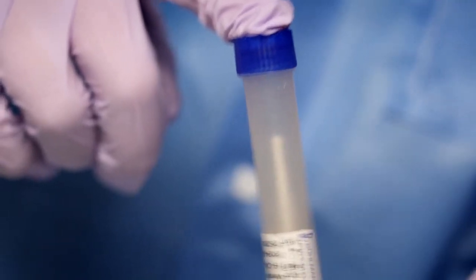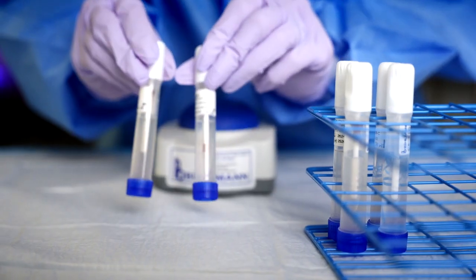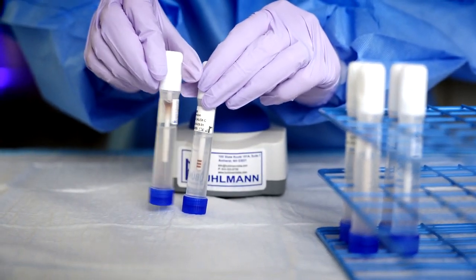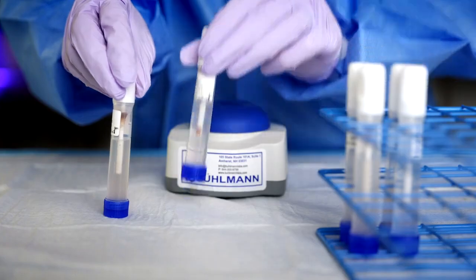If the stool has not been removed from the grooves, you would repeat the process of incubation for 10 minutes, vortex, and visually look. At this point, the stool is extracted and is stable at room temperature for some time, as outlined in your IFU.